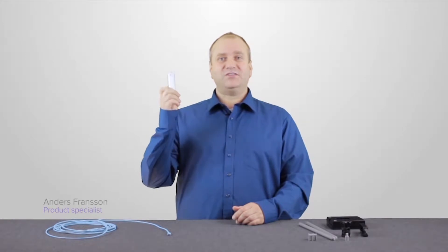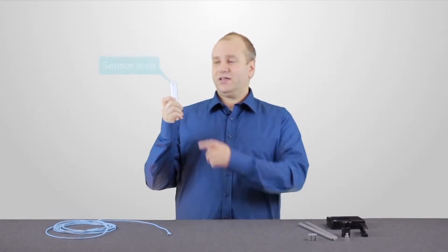Hi, here are some tips and tricks for how to position the X2 sensor. The sensor has a sensor area which needs to be directed towards the x-ray source at all times.